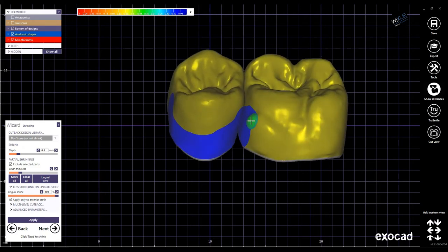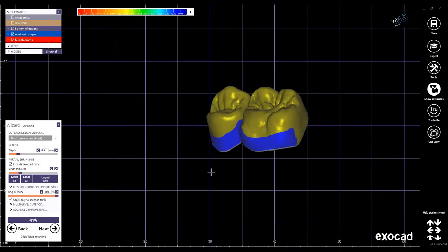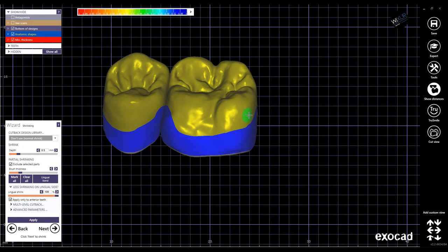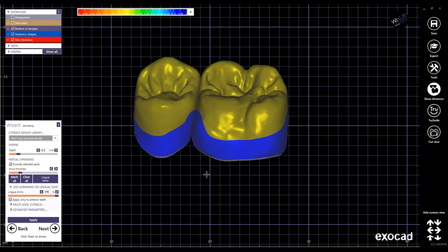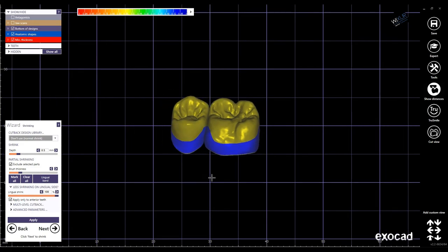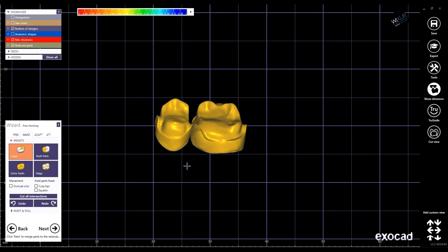You can adjust the height of the lingual band as you wish. I guess this height is good — do some adjustments. The depth of the shrinkage can also be adjusted. Click next.